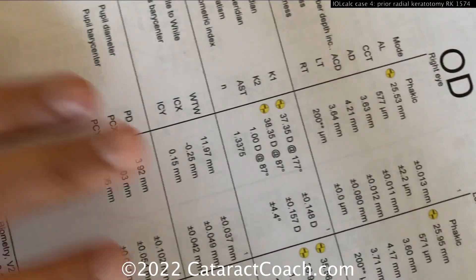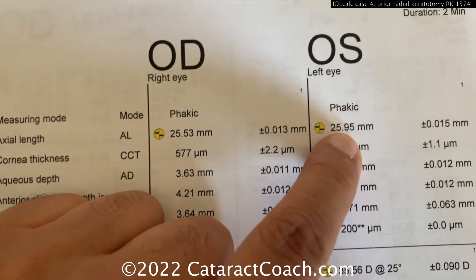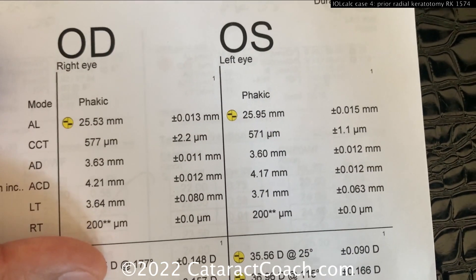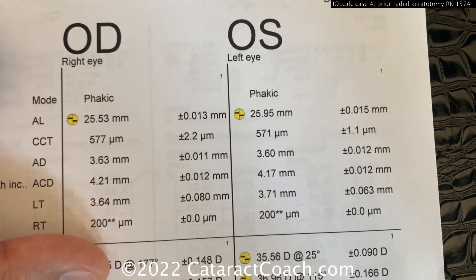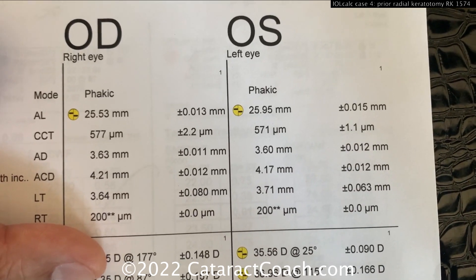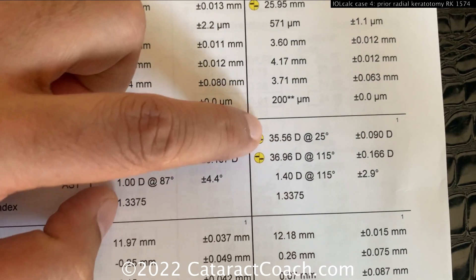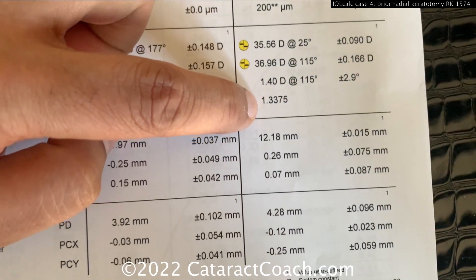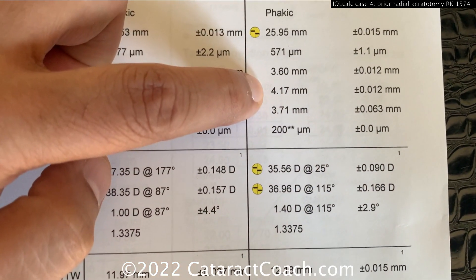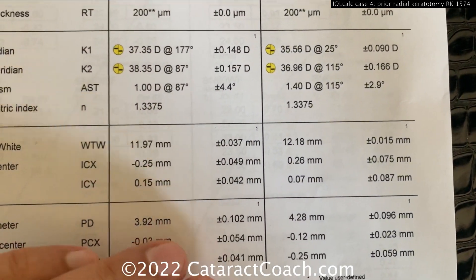Looking at the biometry for the left eye: the patient had an axial length of about 26 millimeters, so fairly myopic — maybe in the minus 6, 7, 8, 9 range. Very consistent with the pachymetry. The Ks again are showing very, very flat. Everything else looks pretty normal: good AC depth and also a large white-to-white, consistent with a myopic eye.